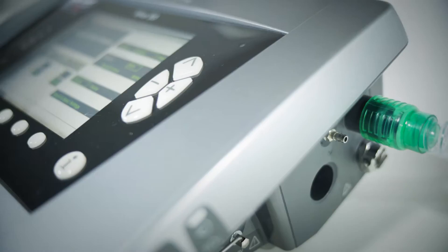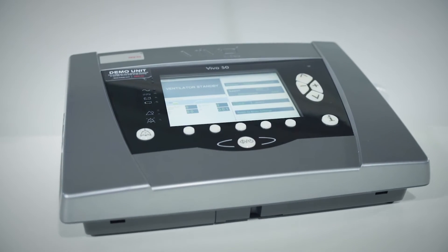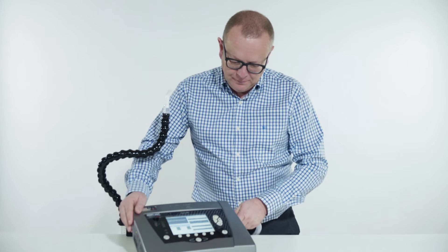Hello and welcome to Brea's tutorial series. In this video I will show you how easy it is to do the setup of the Vivo 50 and 60 so that it can be used to supply pressure controlled mouthpiece ventilation.